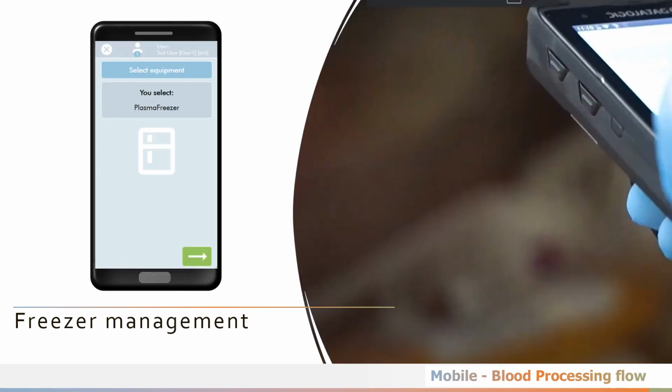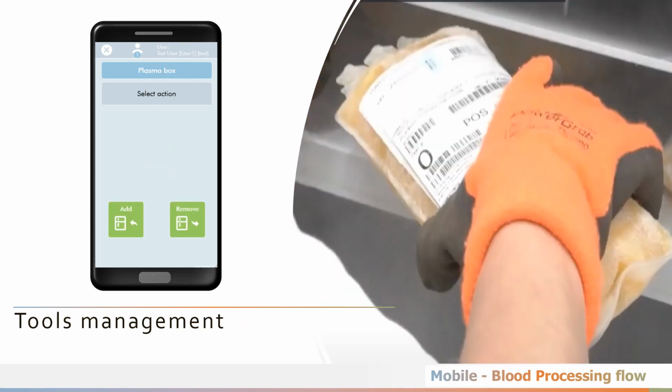It is possible to manage all freezer types, such as freezers for units awaiting validation, freezers for validated units, freezers for units used for therapeutic reasons, and freezers for the plasma industry boxes. No matter who the equipment supplier is, it is possible to manage the blood bank refrigerator, the platelet storage system, and any freezer model.